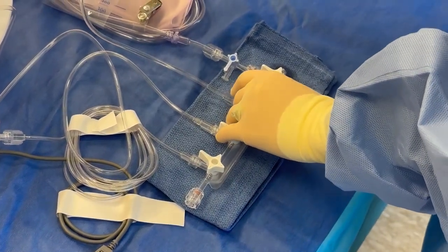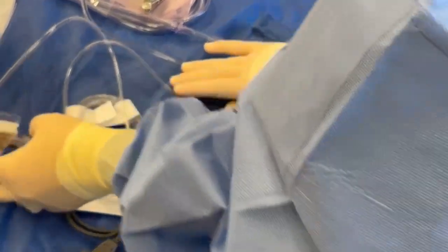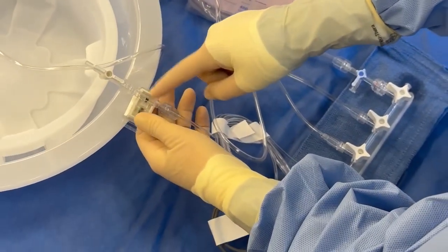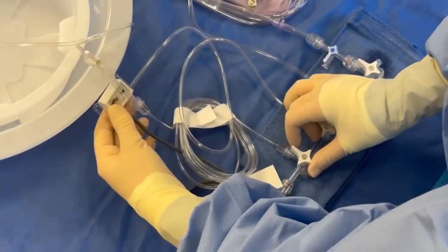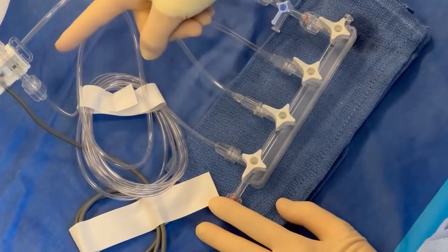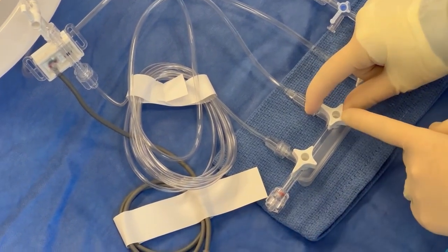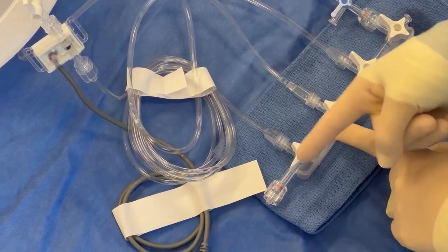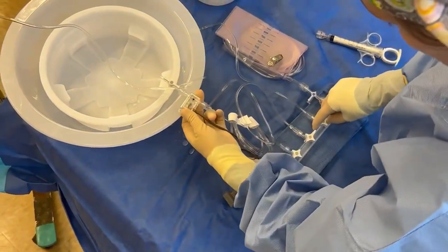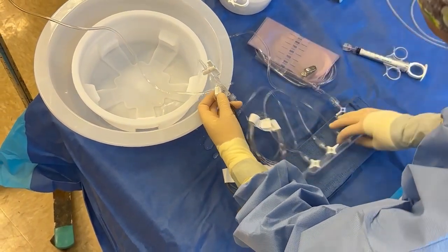We have water in our contrast valves because that's what we have to work with. So while this one is flushing, I'm going to come over here and use my pressurized saline line to flush my pressure line. I'm going to turn it to the left — look at my arrows, it opens the flow up for this pressure line to come from here and go here. When I open my pressurized saline line, I turn it to the right, because again, the arrows represent the flow from here to here. And this is all bubbles — that's what I'm looking for. I'm trying to prevent and handle those bubbles, so I'm going to let gravity work with me. I try to hold this up at an angle; it just encourages the bubbles to get out.